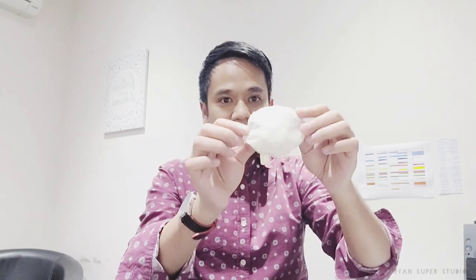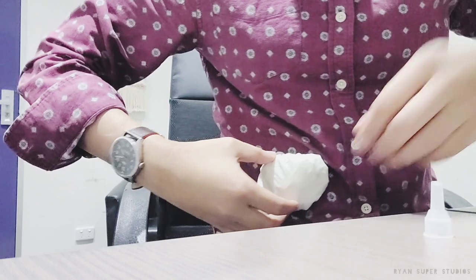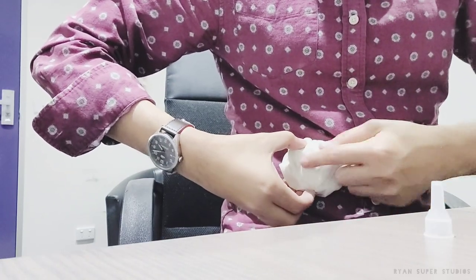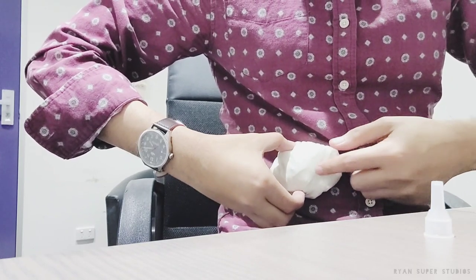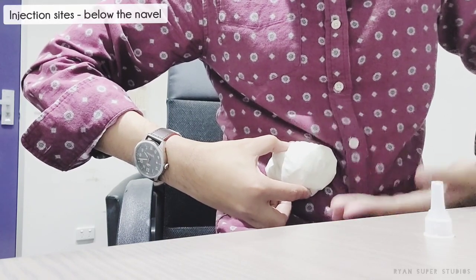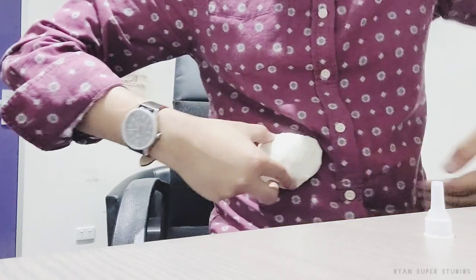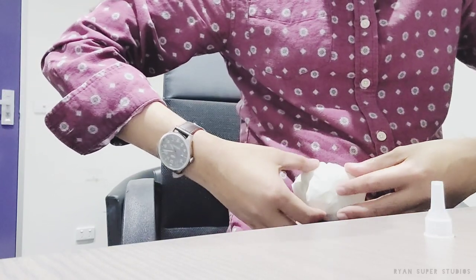Let's just pretend this is my tummy. Make sure your tummy is clean when you inject insulin. It should be below your navel — you can go left or right of that area, but it must be below the navel.